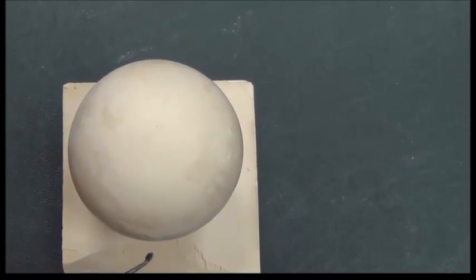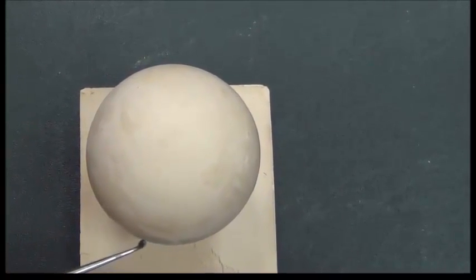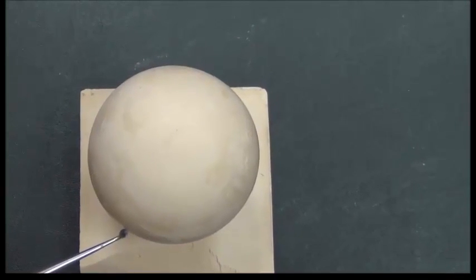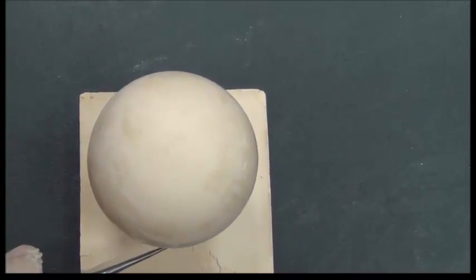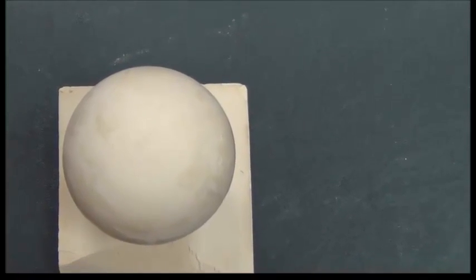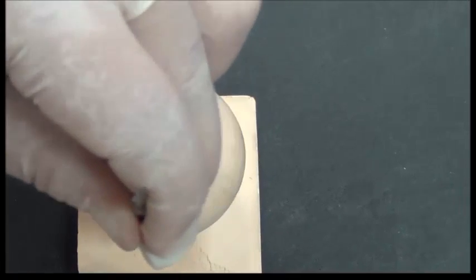I need an instrument to draw this. And also, once I get the survey line, which is on the maximum bulge of the tooth, I need to know which undercut depth I should use. So the idea is, I would use the analyzing rod first to locate the maximum bulge.